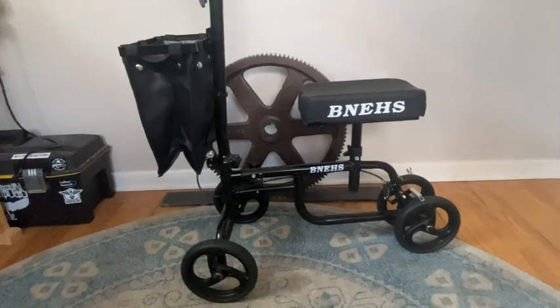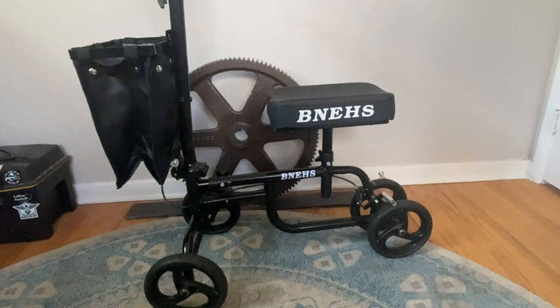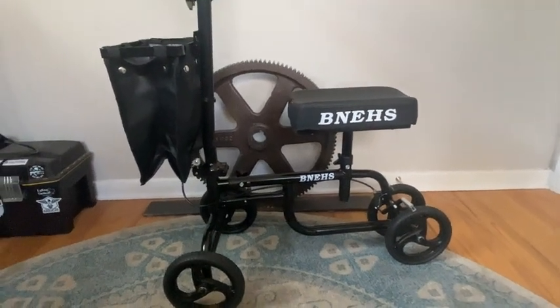He'll probably have a little bit of fun with it with my son as well. My son has a little balance bike which looks similar to this, so maybe he can chase pops around with it.